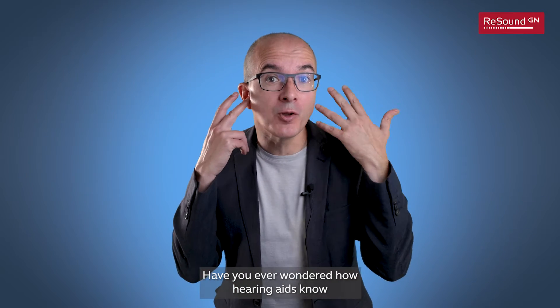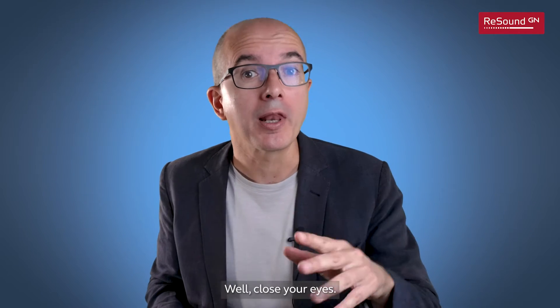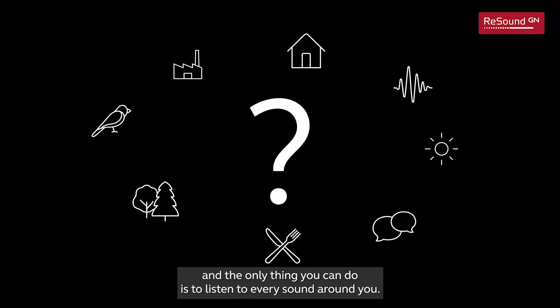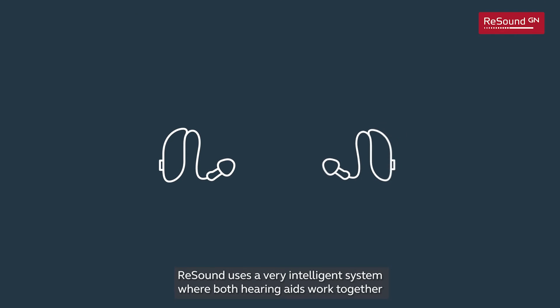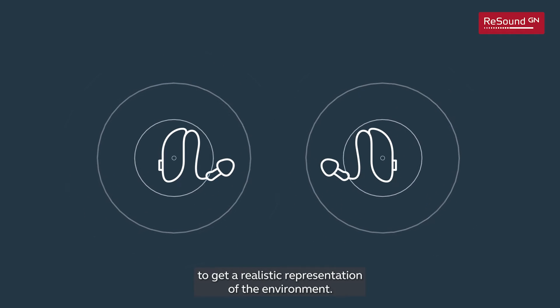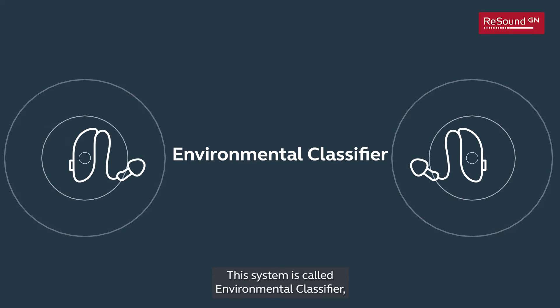Have you ever wondered how hearing aids know what type of environment they are in? Close your eyes — now you are a hearing aid trying to figure out where you are, and the only thing you can do is listen to every sound around you. ReSound uses a very intelligent system where both hearing aids work together to get a realistic representation of the environment. This system is called the Environmental Classifier.